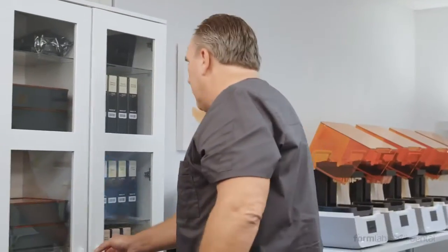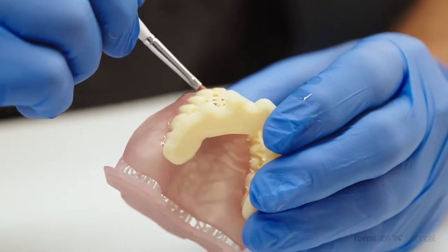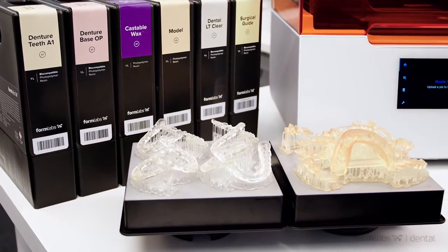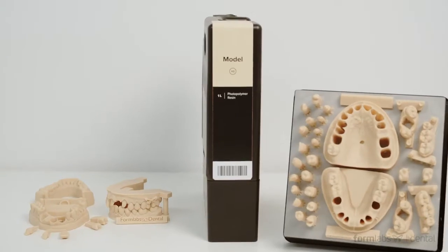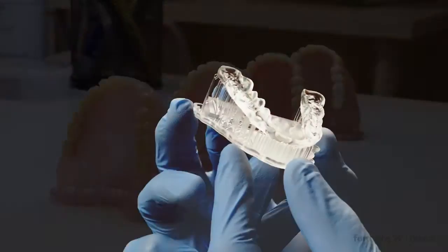And with a vast and always expanding library of materials finely tuned for dental-specific applications, including many biocompatible resins, you'll be able to print anything, from models to directly printed products like full dentures and surgical guides.